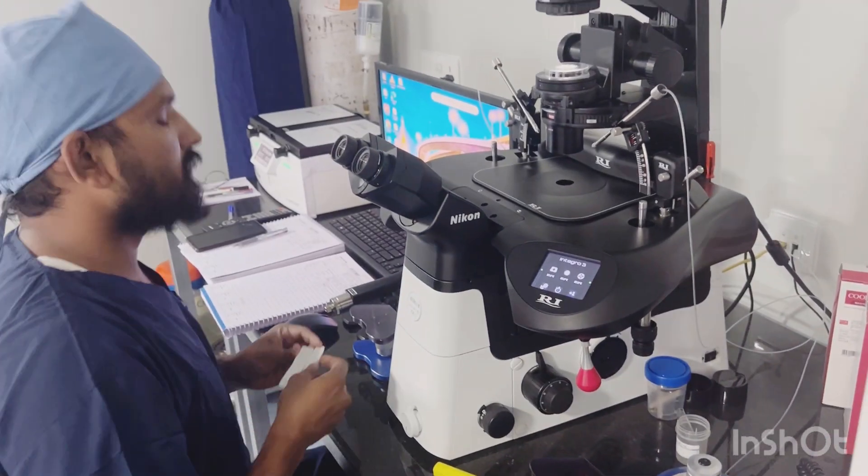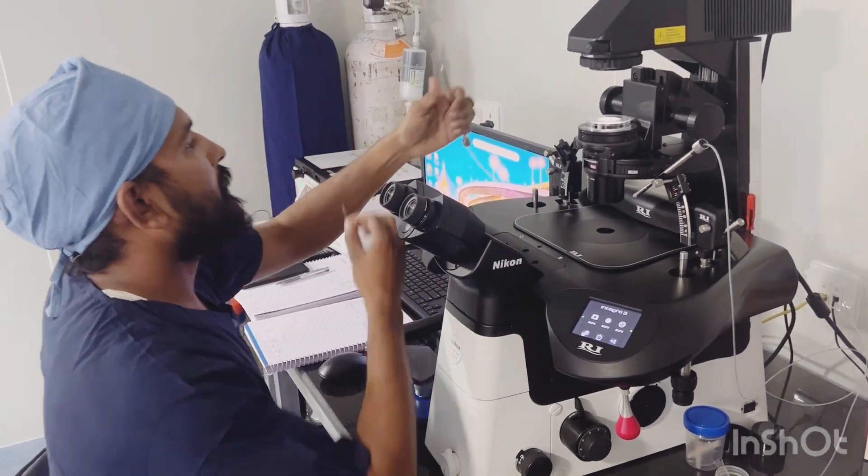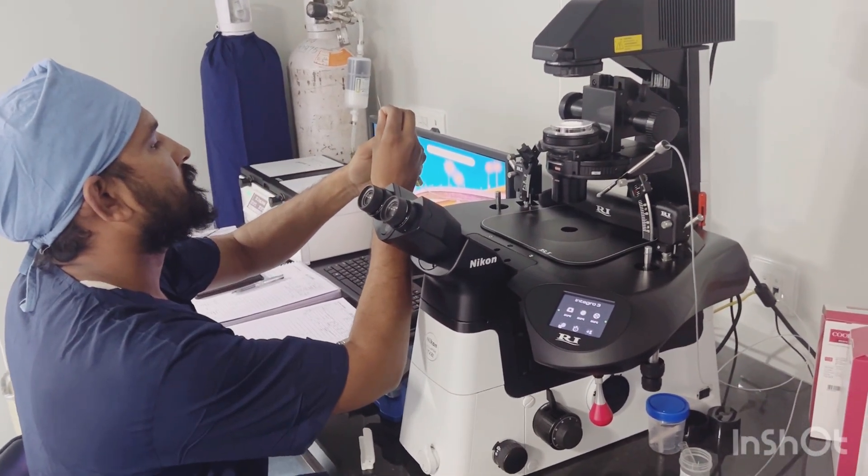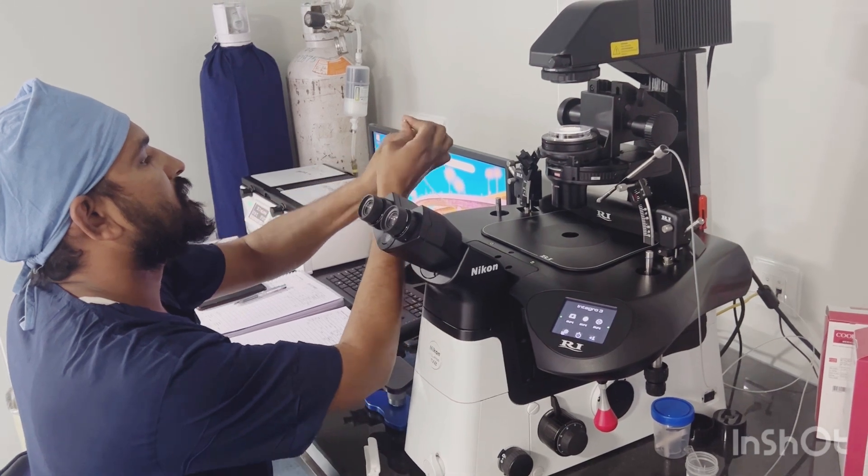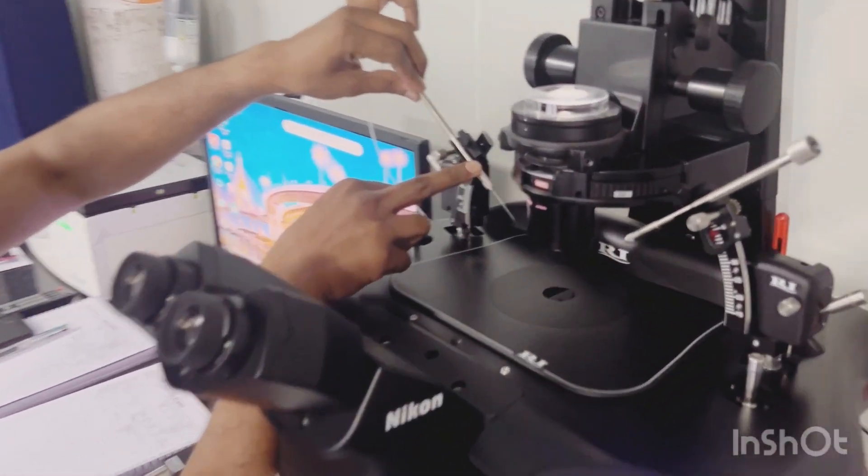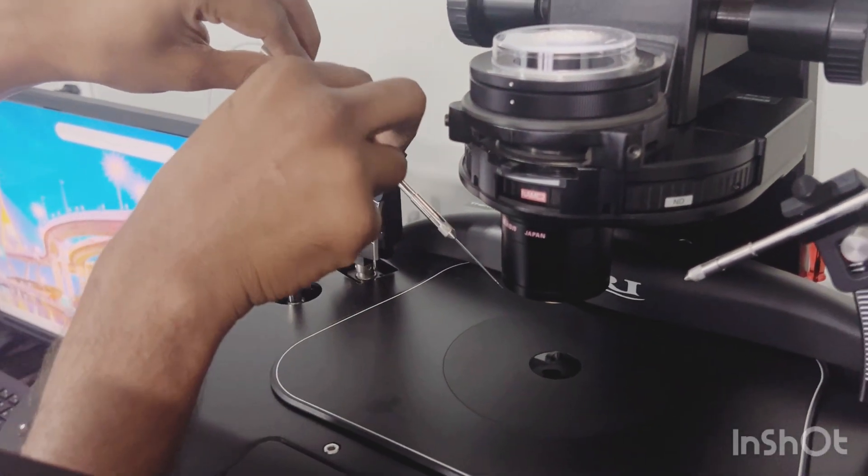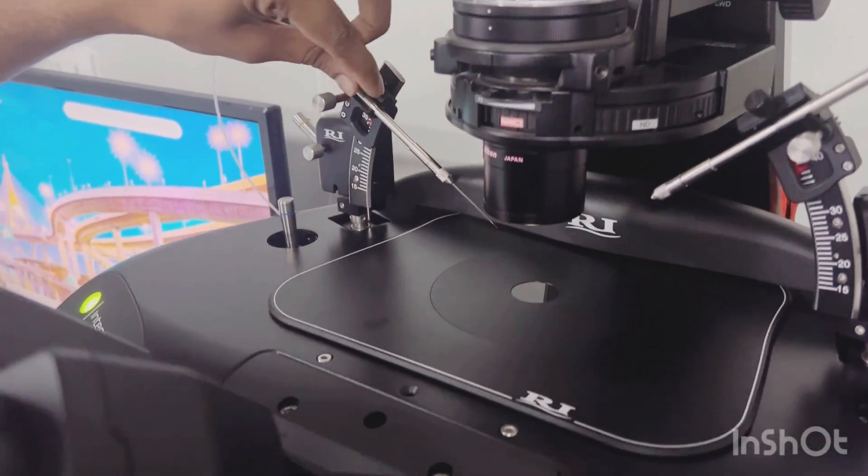Now we are aligning the holding pipette. By this knob, we are positioning down our holding pipette.